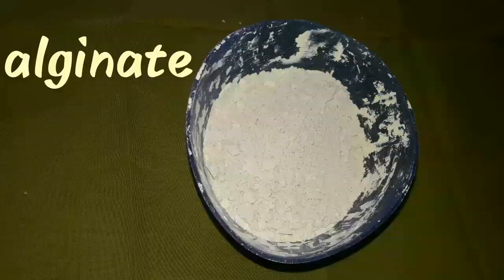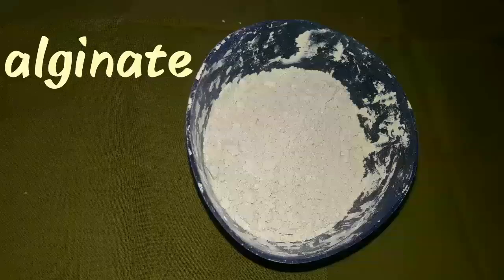This thing is called alginate. As you all guys know, alginate is used in preliminary impression taking. Alginate is an irreversible hydrocolloid, and impressions with alginate are only taken using stock trays.